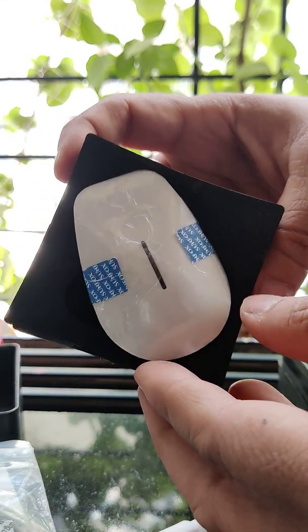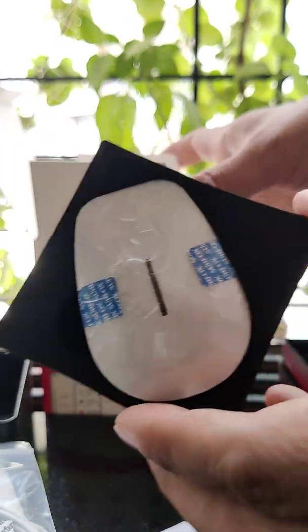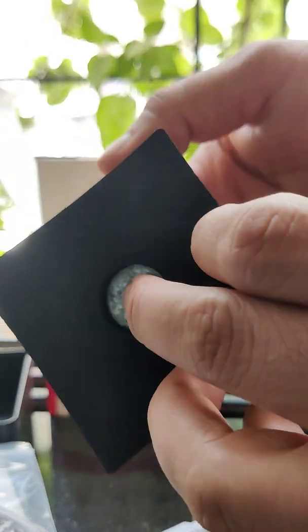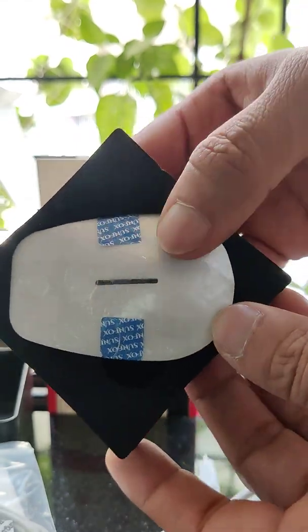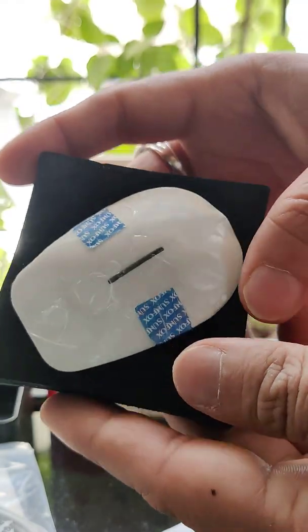So this is all we have from the Spandan ECG device. Let me set it up and do one quick test to see the results. Thank you so much guys for watching — I will keep you posted. Thank you, bye!